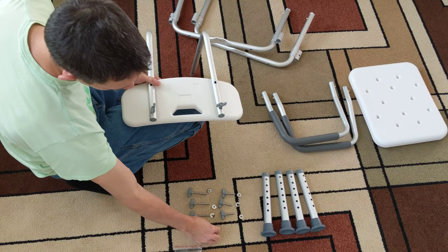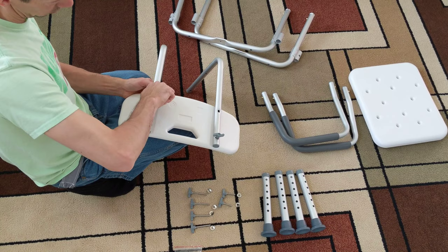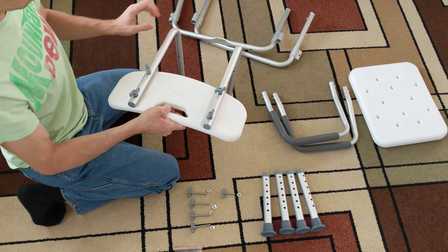Alright, so there's those. Let's get this one on also — short screws. One more. I'm not going to make those too tight yet. There's that.